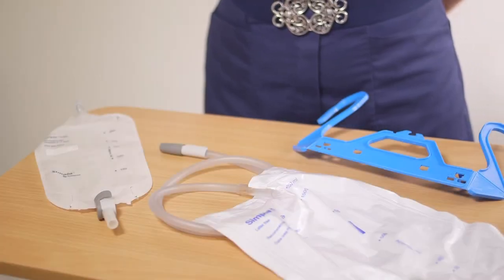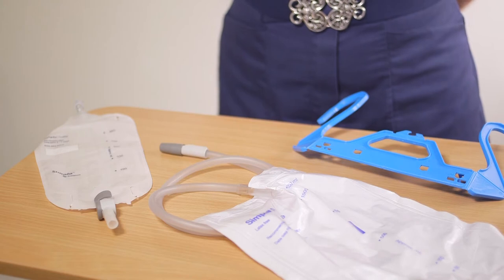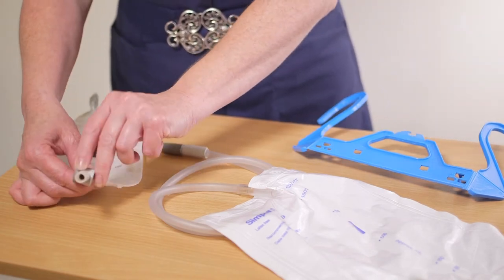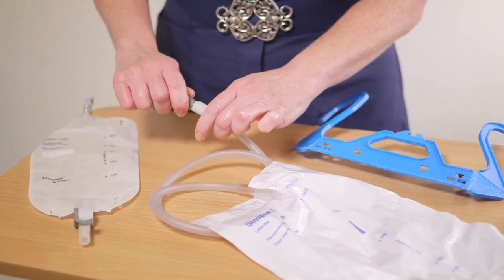To attach the leg bag to the night bag, first wash and clean your hands thoroughly. Empty the leg bag as previously demonstrated and remove the protective cap on the night bag.